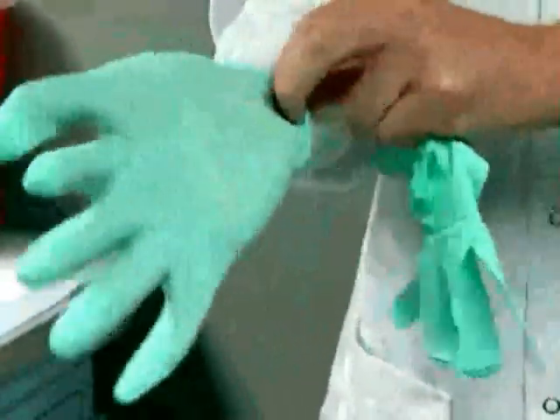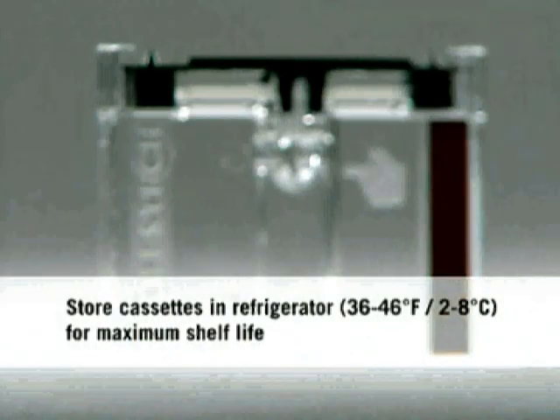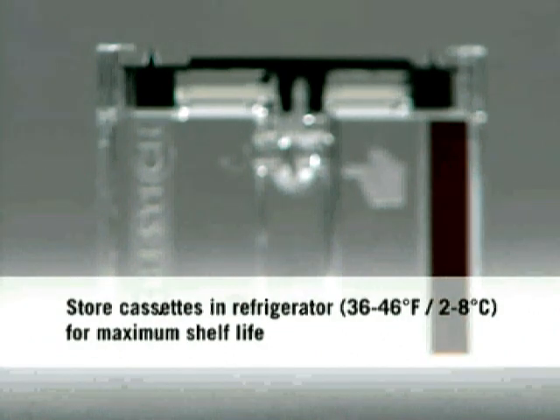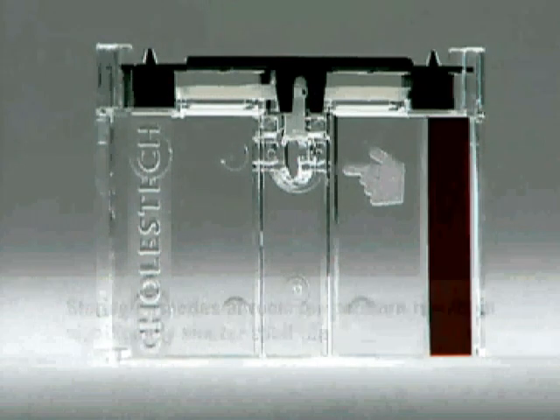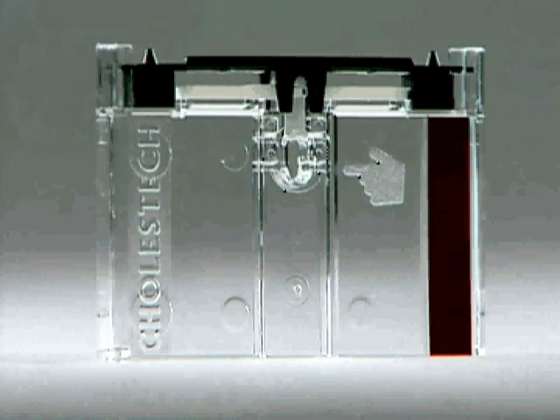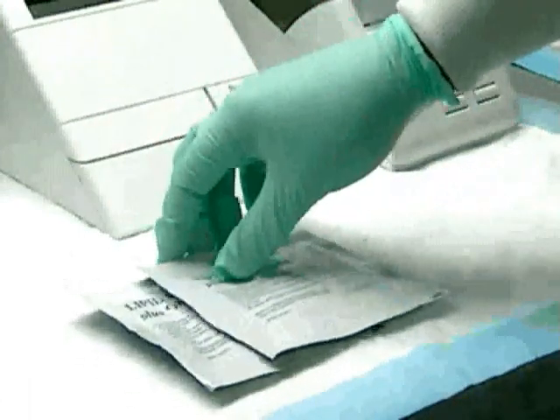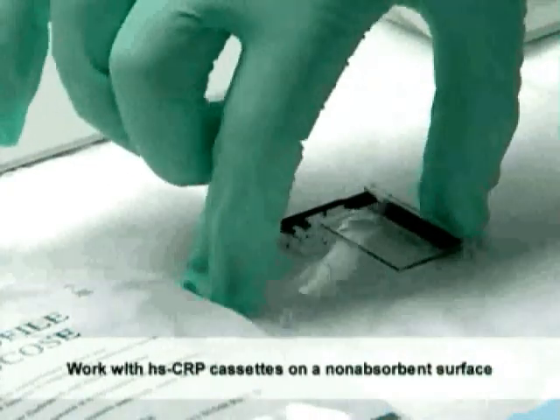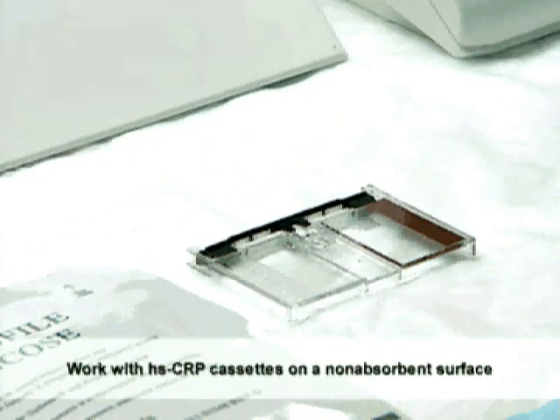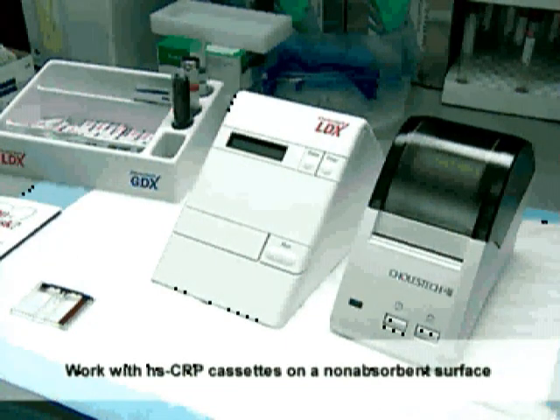Medical gloves should always be worn when handling blood samples or quality control material. Cassettes can be stored in a refrigerator or at room temperature, but shelf life is significantly shorter at room temperature — refer to the package insert for specific dating. Remove the number of cassettes you need from the refrigerator, check they have not expired, and leave the pouch unopened for at least 10 minutes to reach room temperature. Just before collecting a sample, remove one cassette from its pouch and place it on a clean, dry, flat surface with the printed side up. Once the Optics Check and quality control diagnostics are complete, you are ready to run a test.